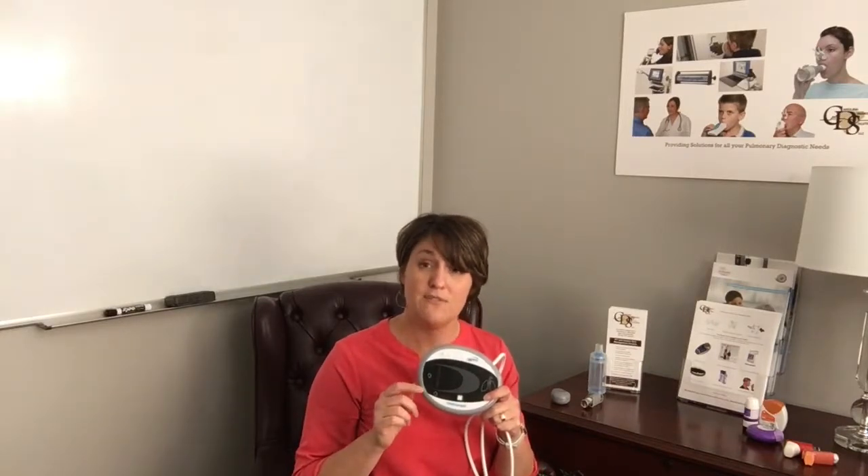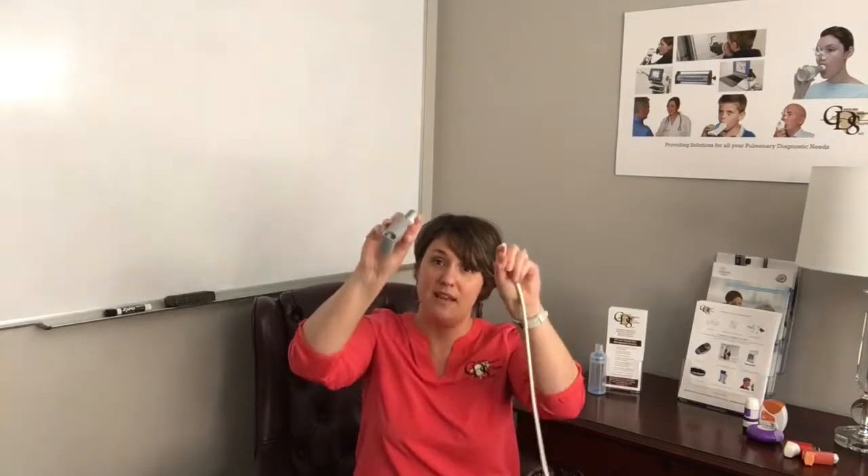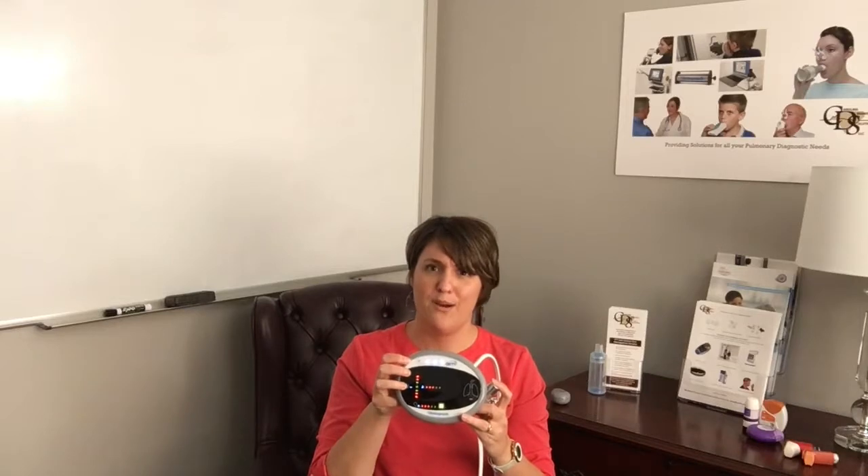The first thing we want to talk about is what inhaler the patient is going to take. We have three different combinations available for teaching on the AIM: the HFA alone, the HFA with chamber, and the dry powder inhaler, the DPI. We also utilize simulators for that, and each patient will receive their own simulator. I'm going to start with the MDI, the PMDI. To use this, we simply take and plug the simulator into the back of the tubing. This tubing is going to register the amount of flow via a pressure transducer — and in the pulmonary function world, we're very familiar with flow transducers.